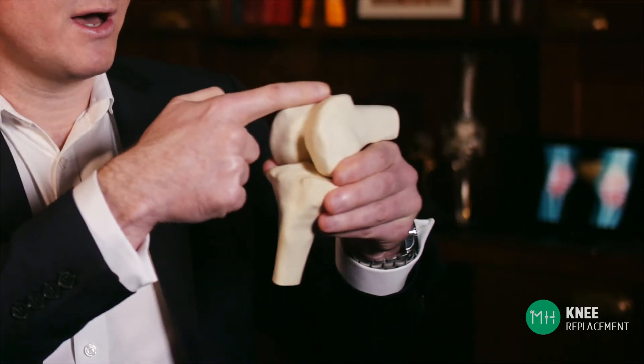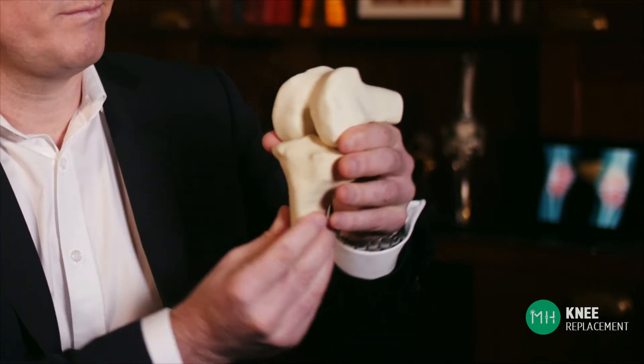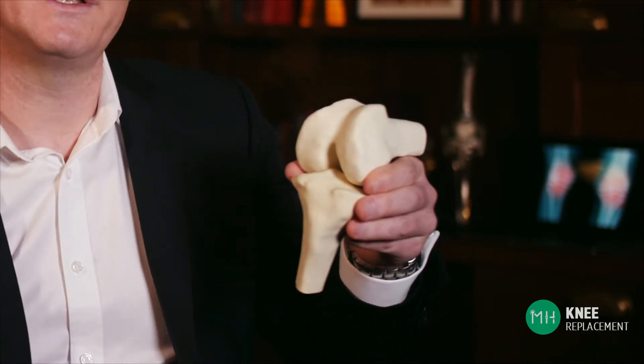We then build a three-dimensional model of your knee that looks exactly like this. This is actually one of my patients' knee joints in three dimensions — the thigh bone up here and the shin bone down there. The three-dimensional model shows every little detail that is unique to your knee joint, and I have this model with me during the operation so that I can refer to it at any time.